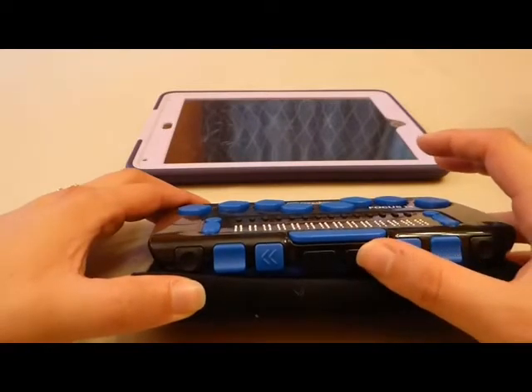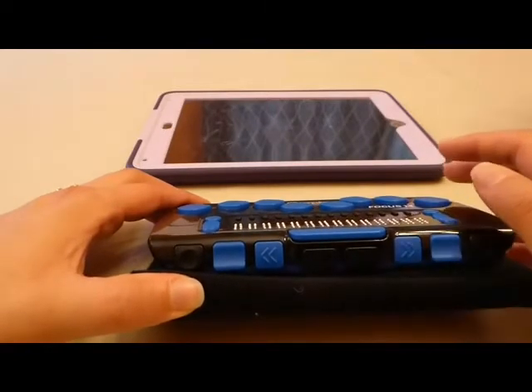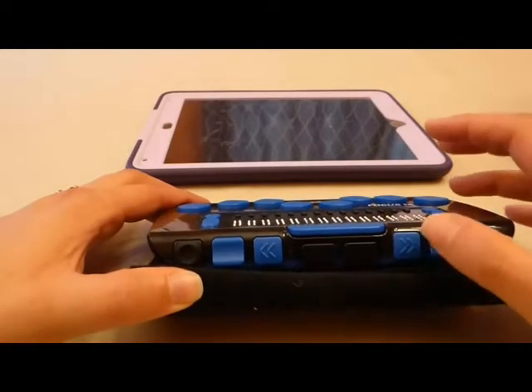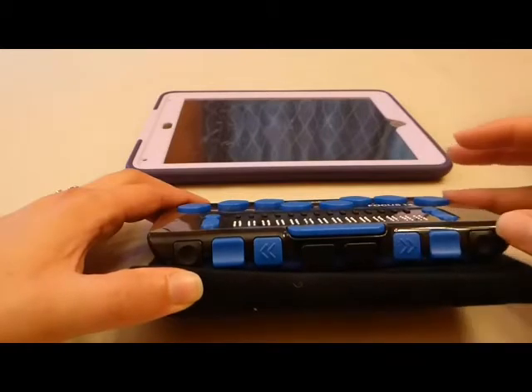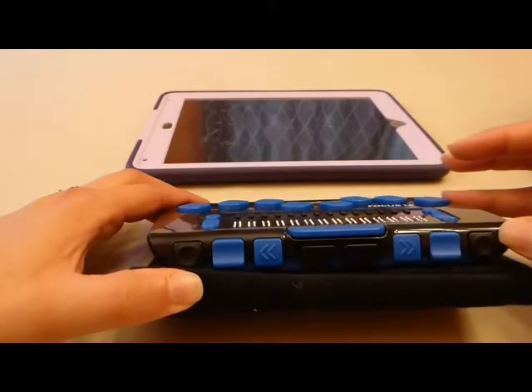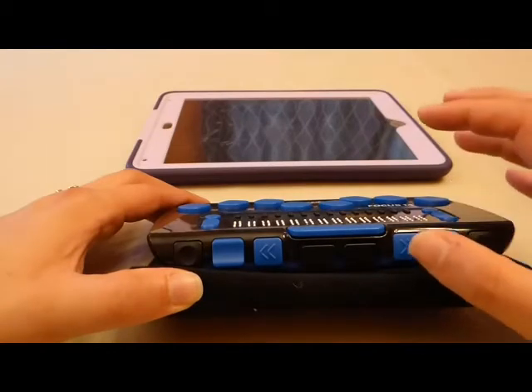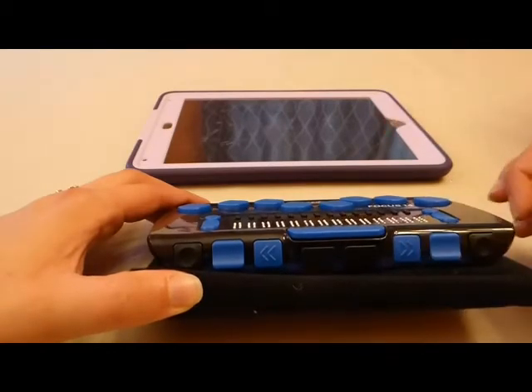And in the center, I find my shift keys. On a Focus 40, these will be in a different order to help with panning efficiency. The panning button is on the far outside, then the rocker bar, then the selector button, and then the shift button as you move inward.